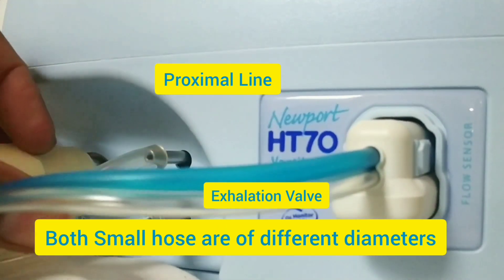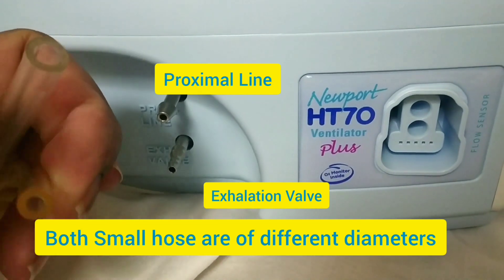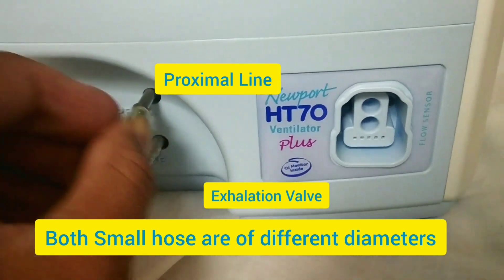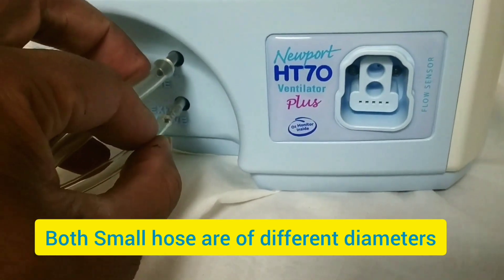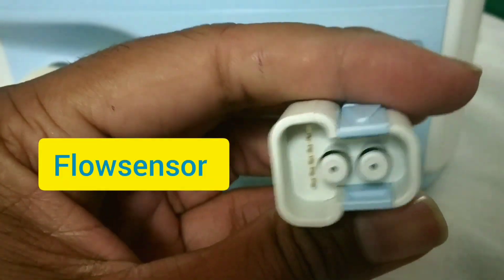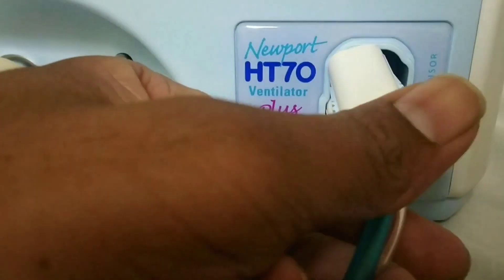At the ventilator end, the connections are: the flow sensor, the proximal line, the exhalation valve, and the main air-delivering hose. Both tubes have different diameters so they cannot be mixed — the proximal line goes to proximal and the exhalation valve pipe goes to exhalation. Make sure all tubes are properly attached; just press the flow sensor connector in and it will get locked.